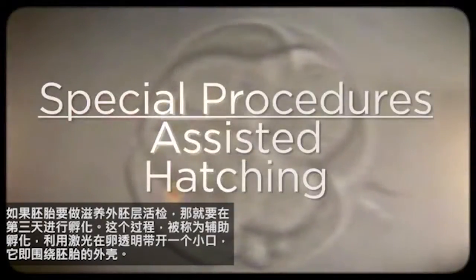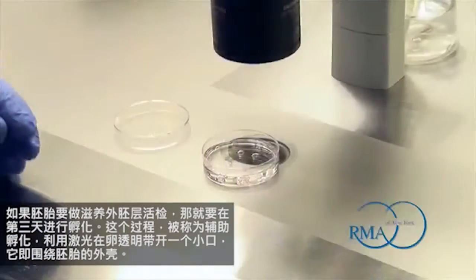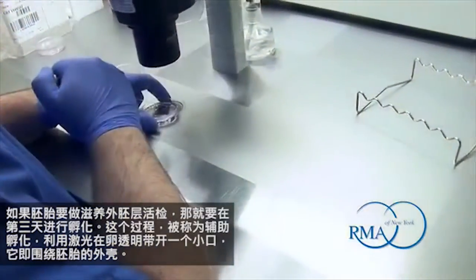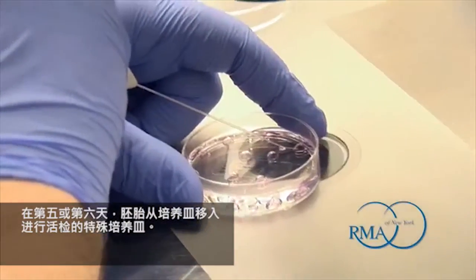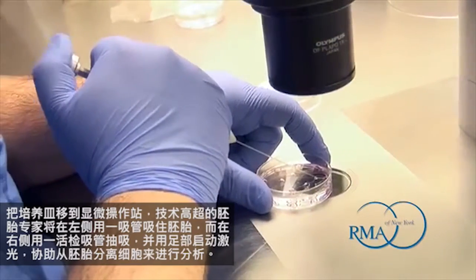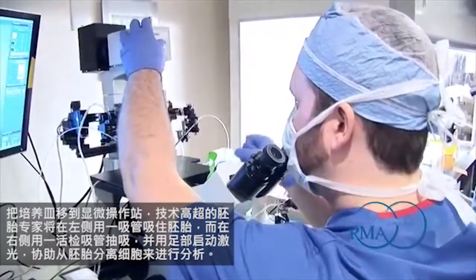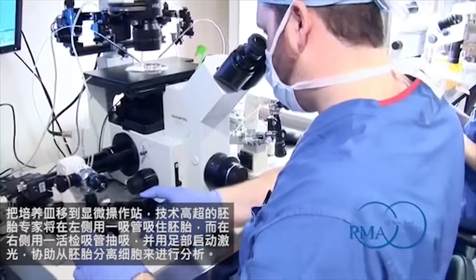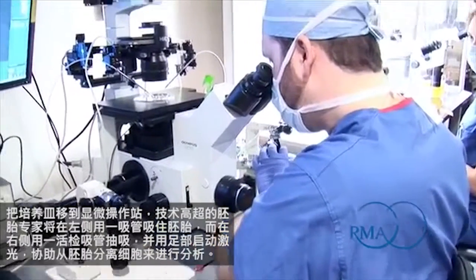If an embryo is going to have a trophectoderm biopsy, the embryo may be hatched on day three. This process, called assisted hatching, uses a laser to make a small opening in the zona pellucida, which is the outer shell around the embryo. On day five or day six, the embryos are moved from the culture dish to a special dish made for the biopsy procedure. The dish is then moved to the micromanipulation station where a highly skilled embryologist will hold the embryo with a holding pipette on the left, aspirate cells with the biopsy pipette on the right, and use a foot-activated laser to assist in separating the cells to be analysed from the embryo.